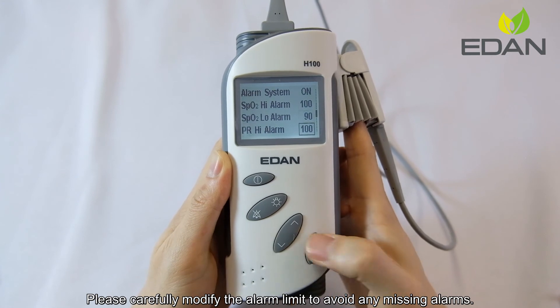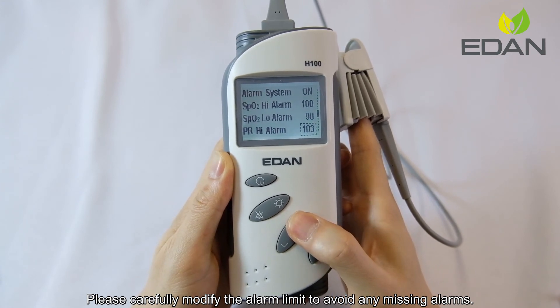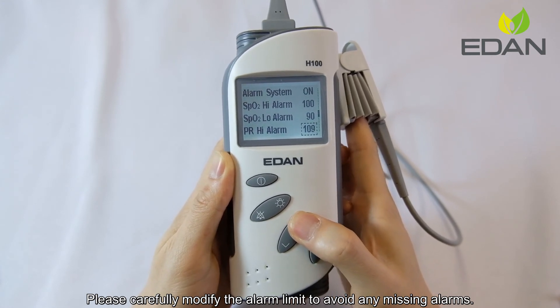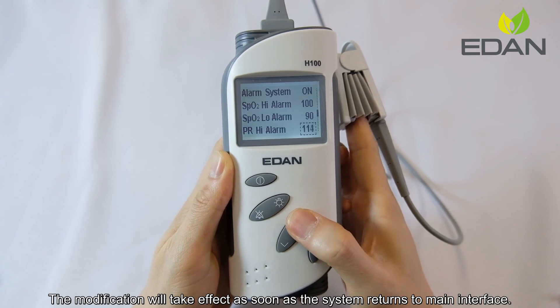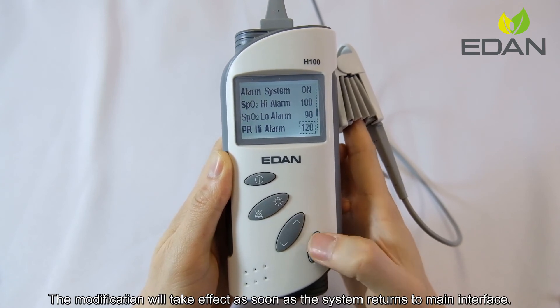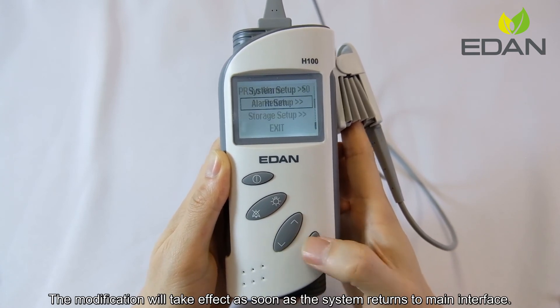Please carefully modify the alarm limit to avoid any missing alarms. The modification will take effect as soon as the system returns to the main interface.